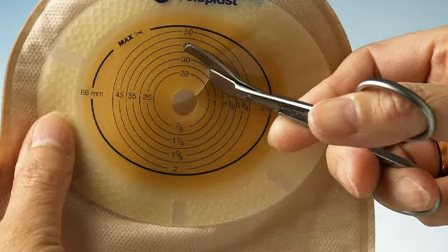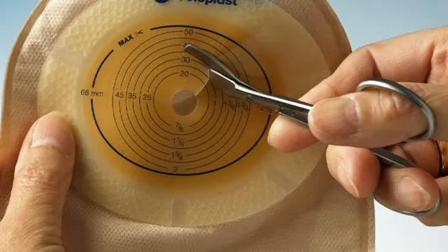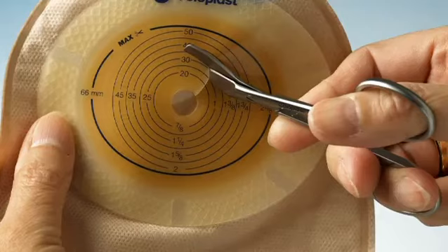you will need a stoma guide, a pen, and a pair of curved scissors. The diameter of the stoma will change over time, so make sure you always keep a close eye on the size of your stoma.